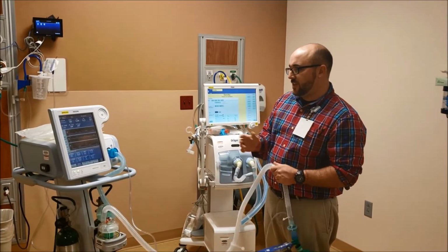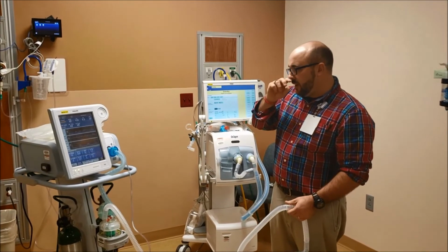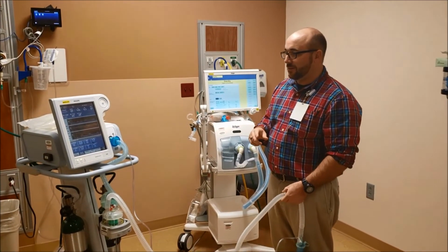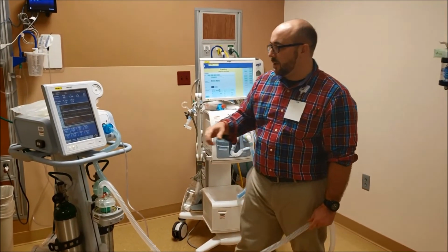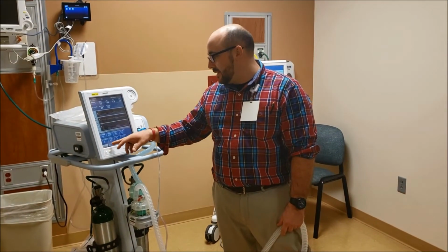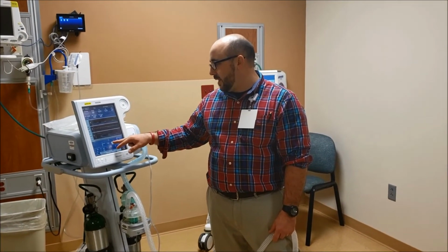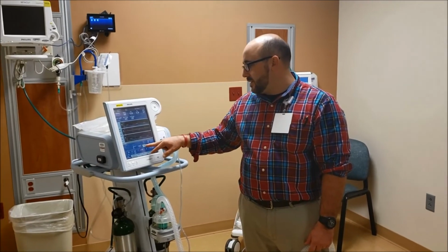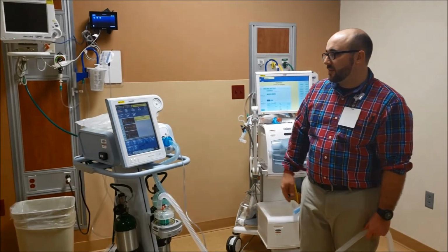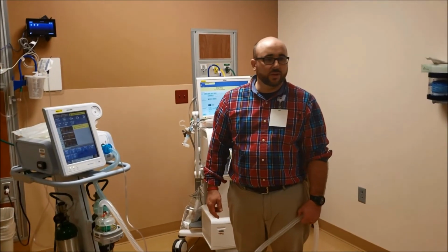If you get into trouble with this one, and they have an intratracheal tube, of course you're going to manually ventilate. If they have a mask, you're going to call respiratory or anesthesia because they might need to be intubated at that point. But you can always go in, and when you go to the settings here, hit the FiO2 and just go all the way up to 100. It doesn't have that really nice button that does that, so it will give them up to 100% oxygen now, so you can adjust it there.